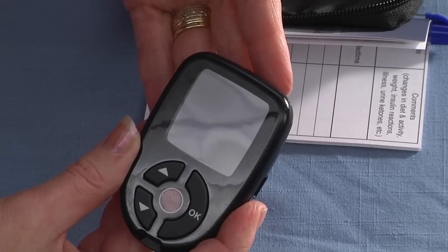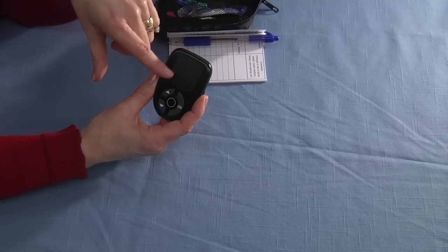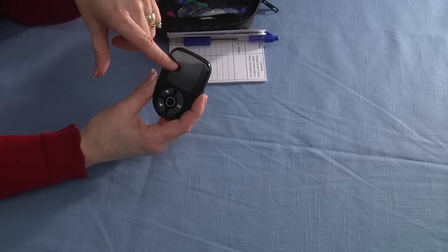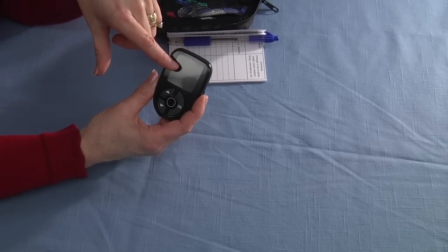This particular meter has two batteries on the back. If the batteries get low, it will give you an icon so that we can change the batteries.